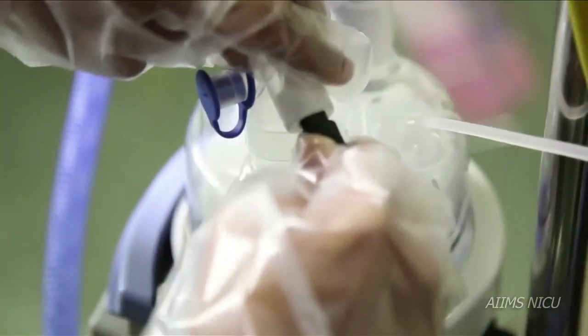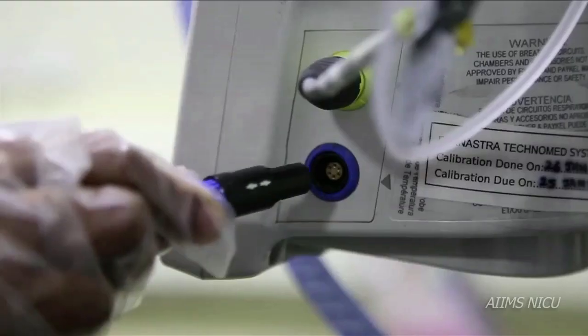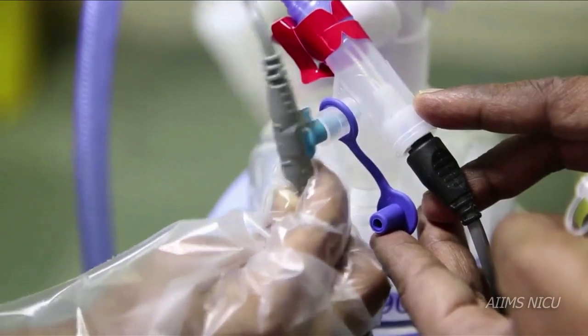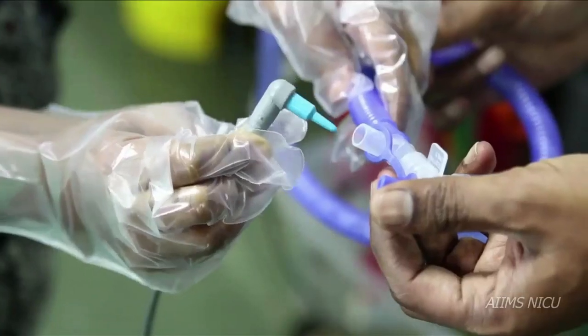Fix the heater wire and the temperature probe to the appropriate slots available in the humidifier and the inspiratory limb of the bubble CPAP circuit.